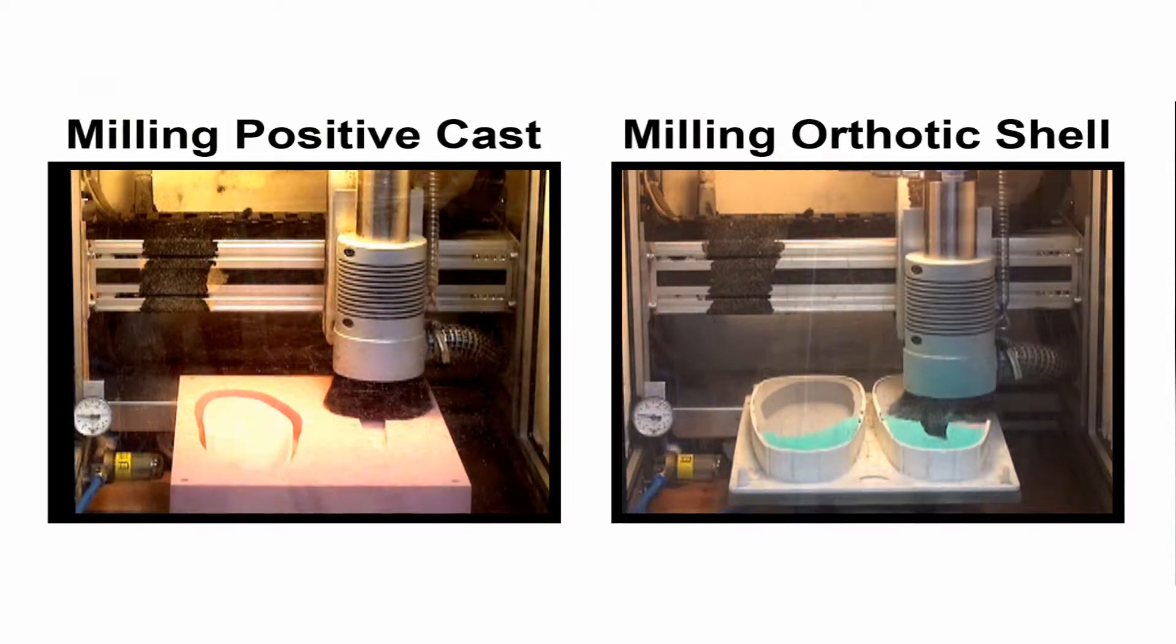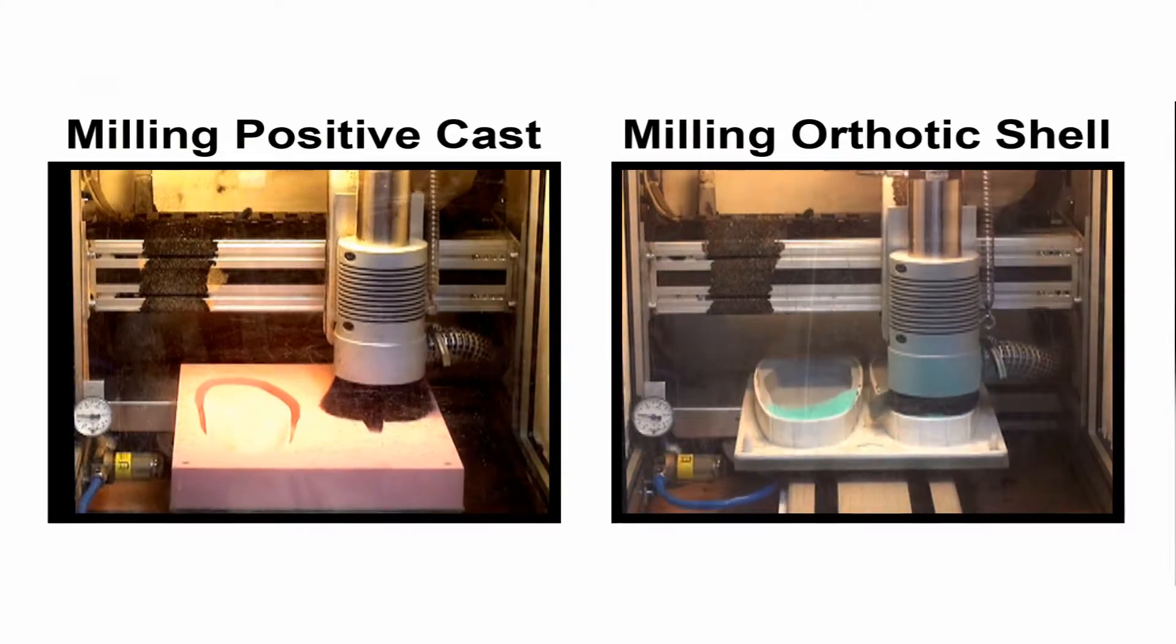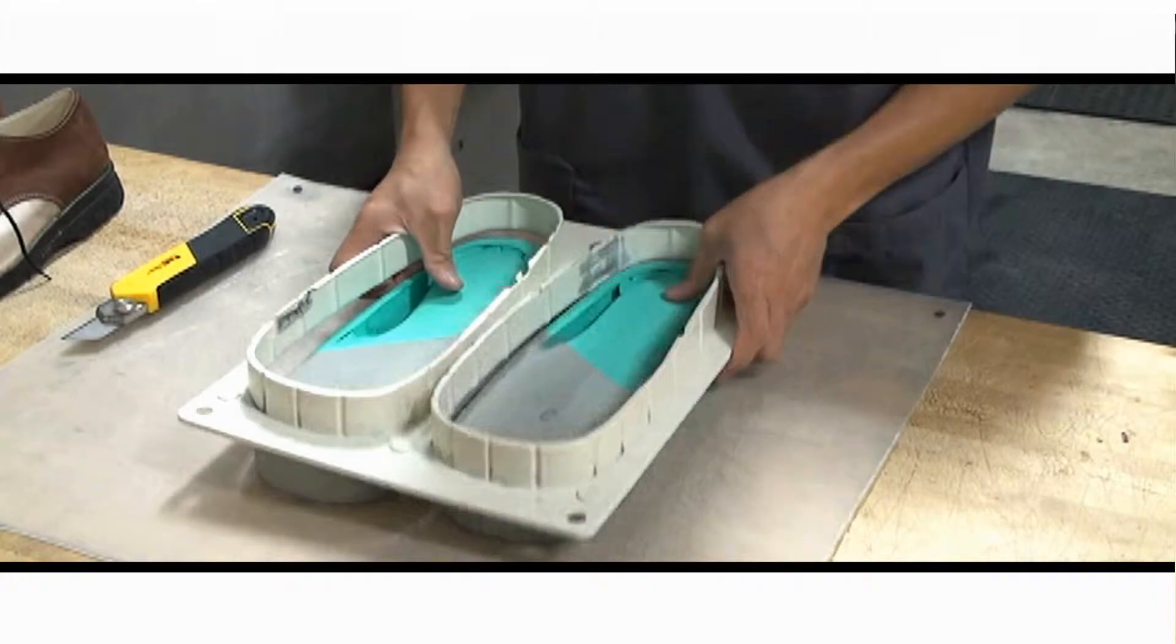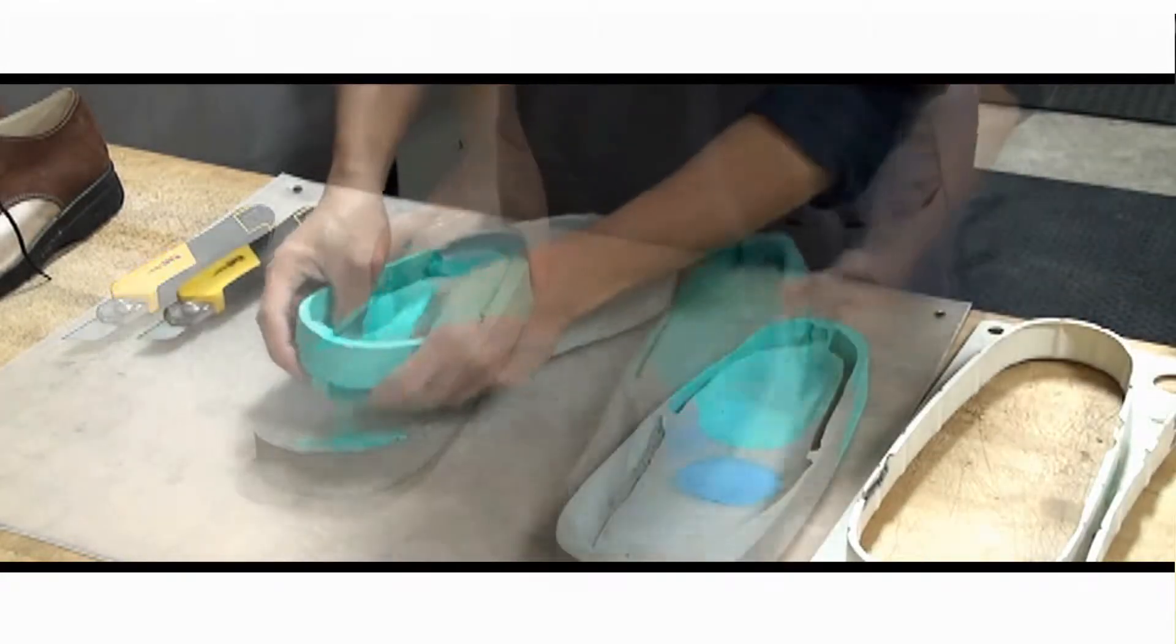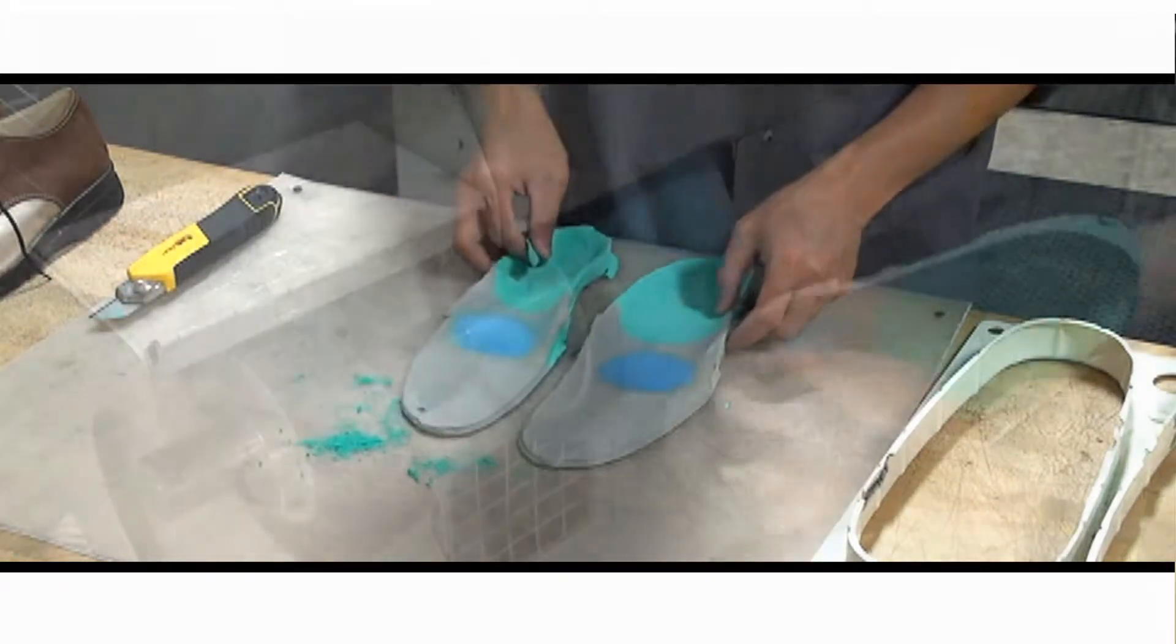Using an integrated evidence-based fabrication system, we specialize in providing unique solutions for foot-related problems through the creation of custom orthotics, footwear, insole pressure mapping, and modifications to off-the-shelf orthopedic shoes and offloading devices.